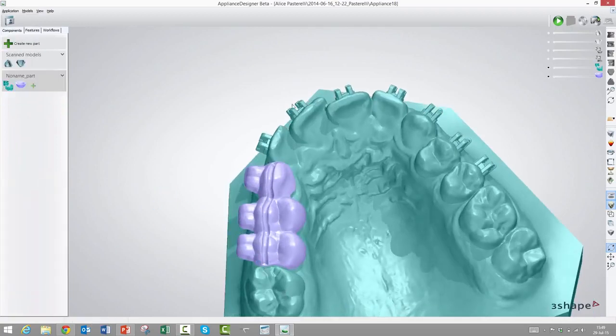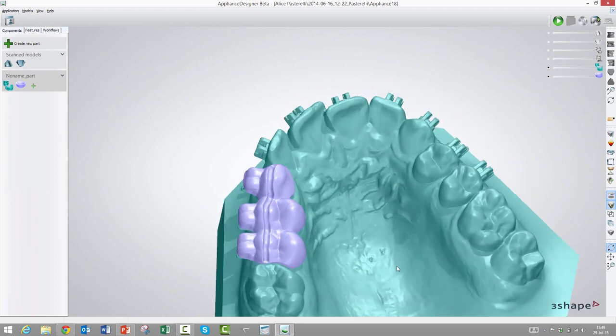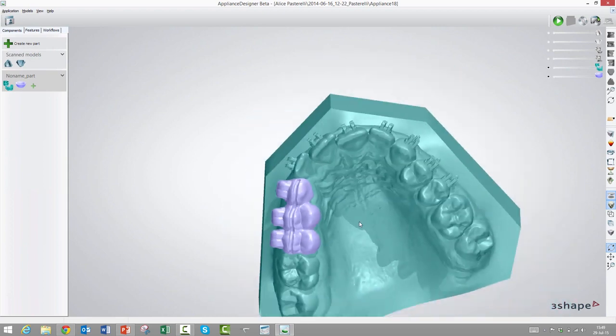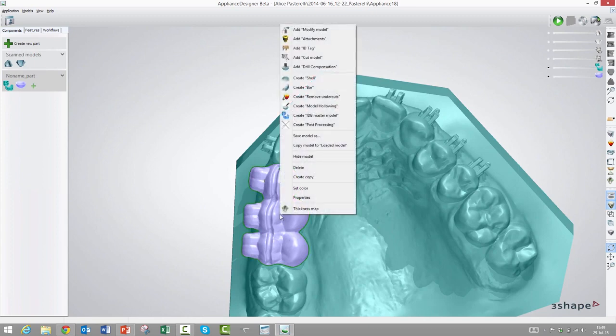Maybe we want to make one here, but you get the idea. If we had in fact made this transfer tray along the entire arch, then probably we would want to see it in sections. Maybe we want to see this section in one go, and this in one go, so make checks basically.